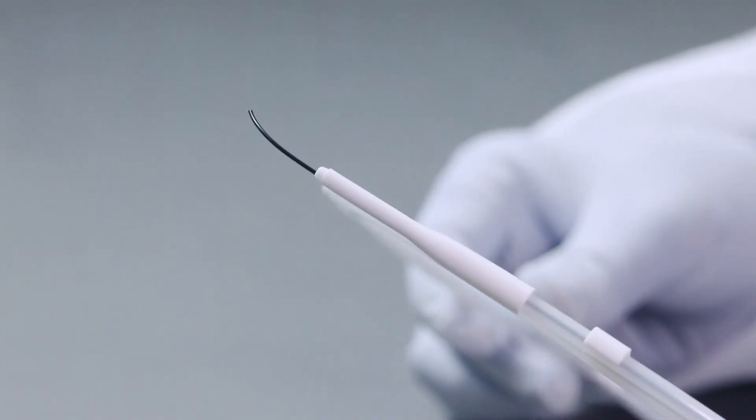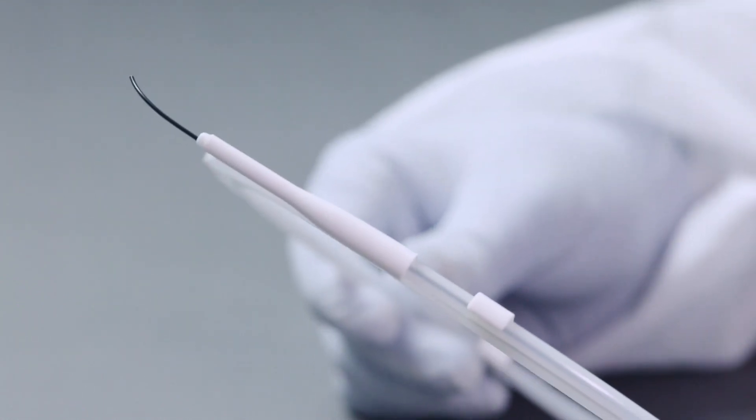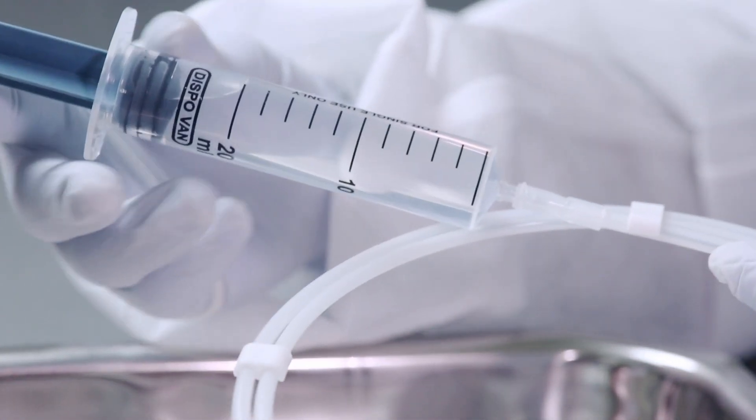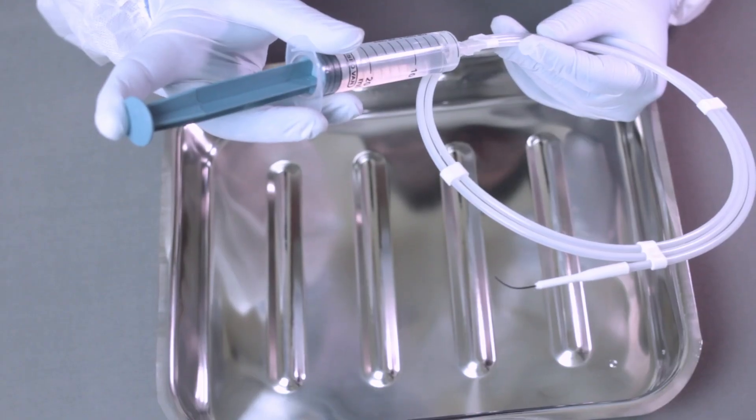Do not remove the guide wire without activating the hydrophilic coating. Connect the dispenser luer to the syringe filled with heparin or saline solution.